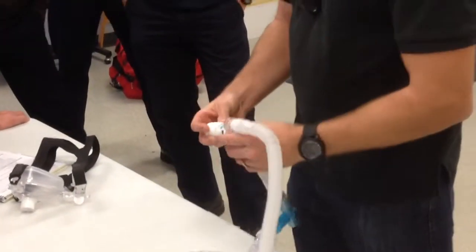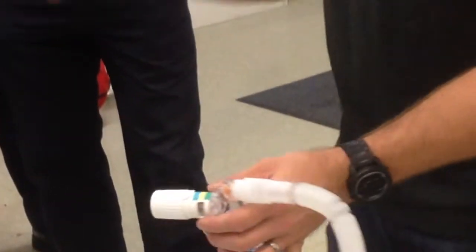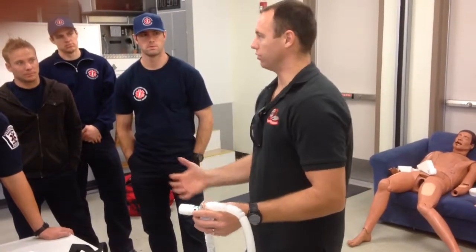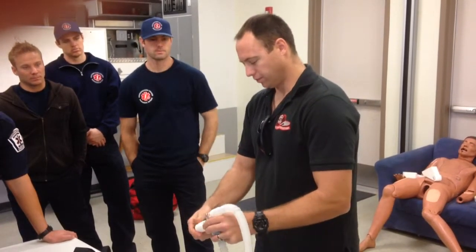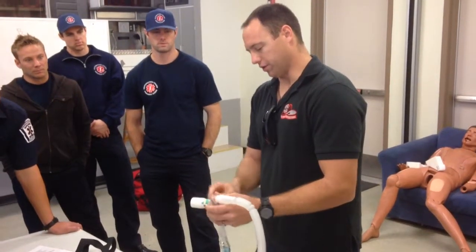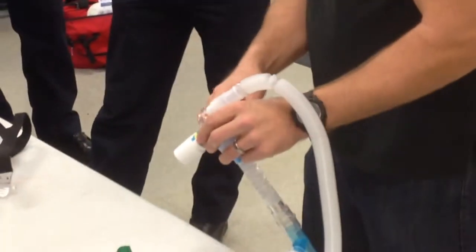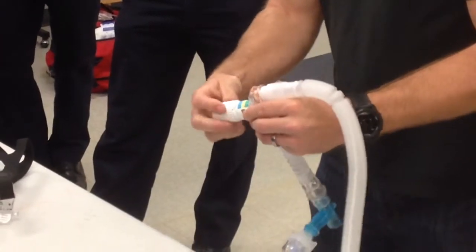This dials in your centimeters of water, 5, 7.5, 10. Okay. What I will tell you is, for school and testing purposes, start at 5, evaluate your patient, O2 sat, skin signs, work of breathing, and then if needed, dial that up. There's a spring in here that, as you tighten this, it increases the amount of pressure that's going in. Okay? So whatever this arrow is pointing to is what you're flowing. Are you guys all semi-familiar with this? Okay. So start with 5.